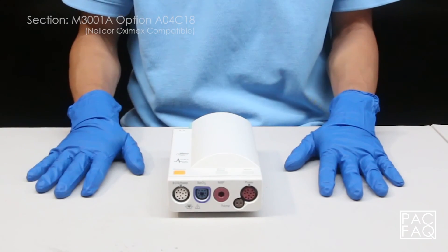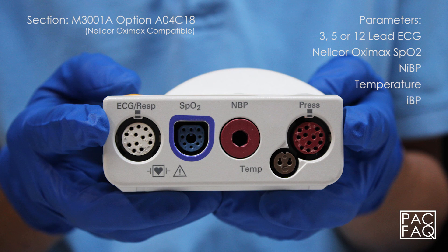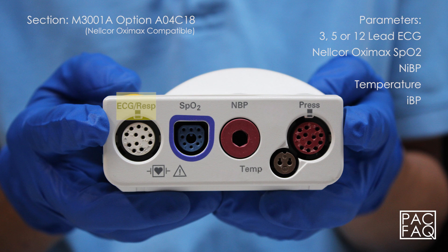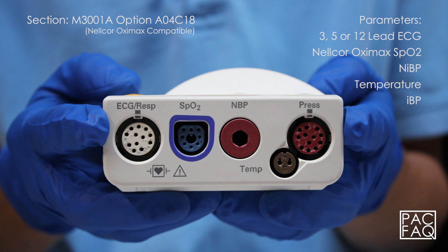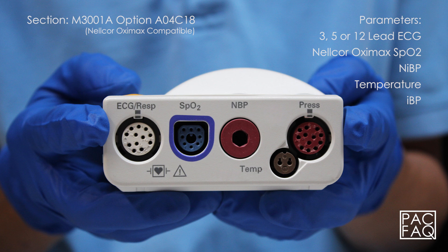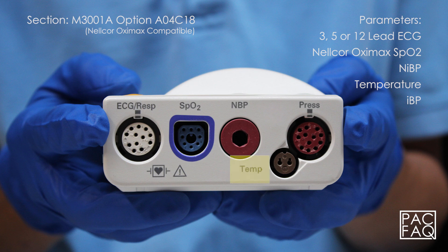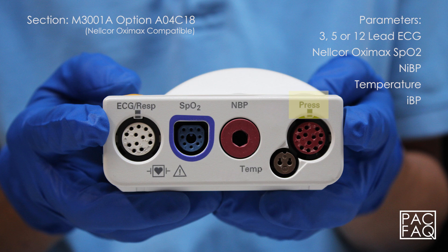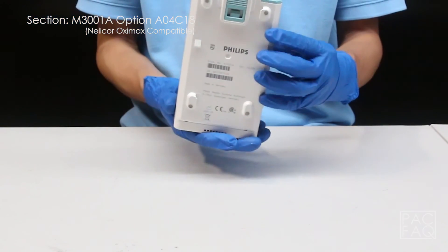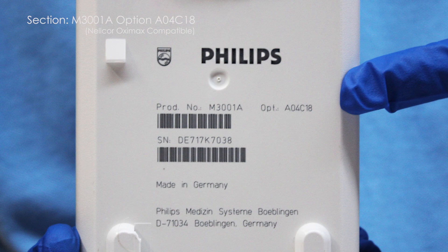Here we have option A04 C18. This unit comes with parameters 3, 5, or 12 lead ECG, Nellcor OximaX SPO2, non-invasive blood pressure, temperature, and invasive blood pressure. The product identification and serial numbers are located on the bottom of the unit.